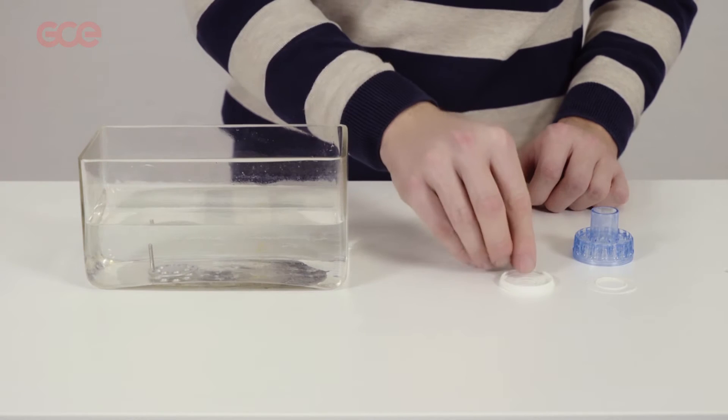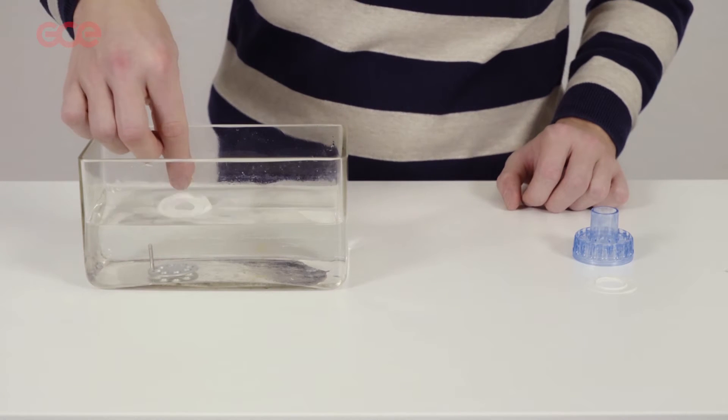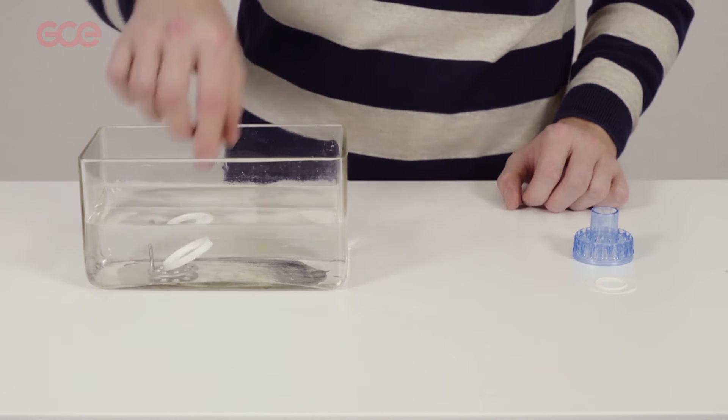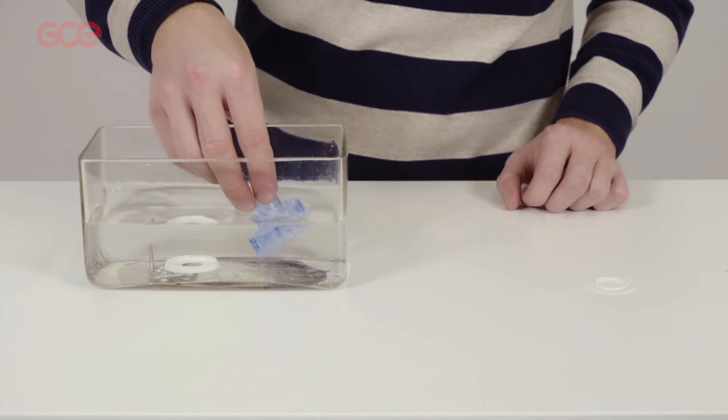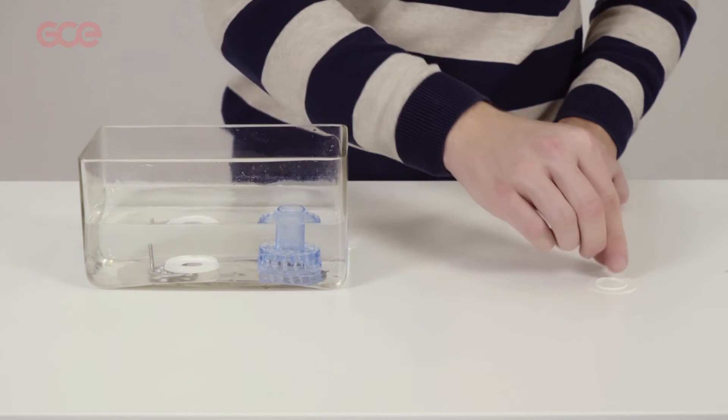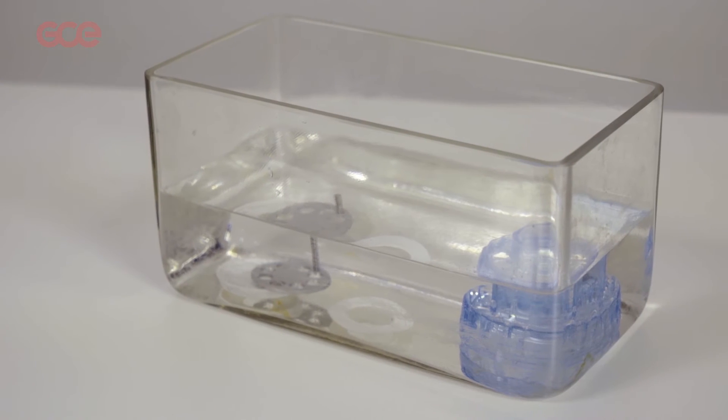Either wash all parts with warm water at a maximum temperature of 60 degrees C and use an approved disinfectant. For help in choosing the correct disinfectant, contact your product supplier.